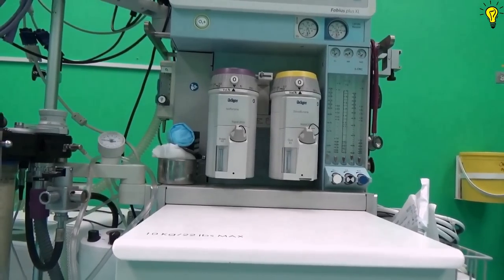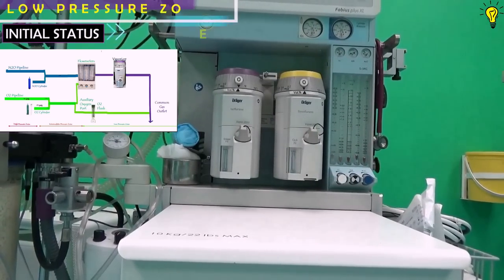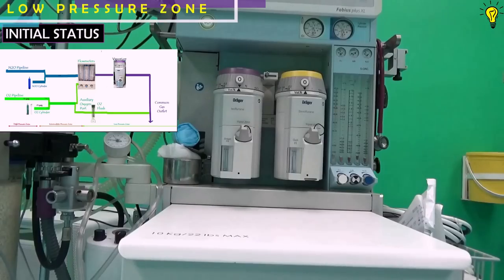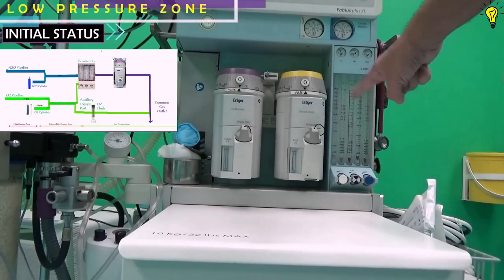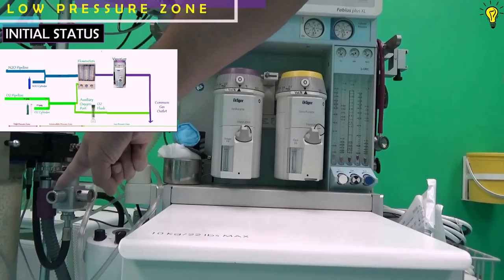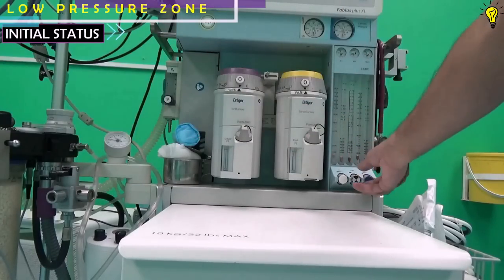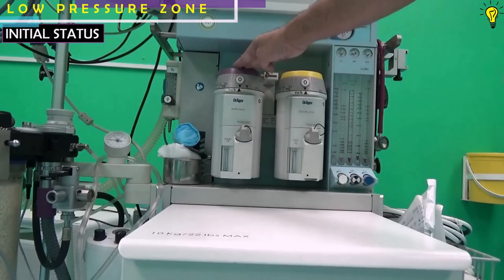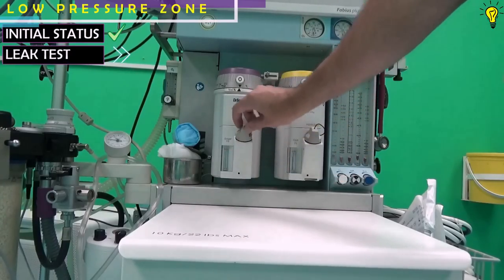From the previous episode on the low pressure zone of the anesthesia machine, we know that the low pressure zone begins from the flow meters, includes the flow meters and vaporizers, all the way out to the common gas outlet. Make sure that the gases are off at the moment and the vaporizers are turned off. Check the fill levels and tighten the filler cap.